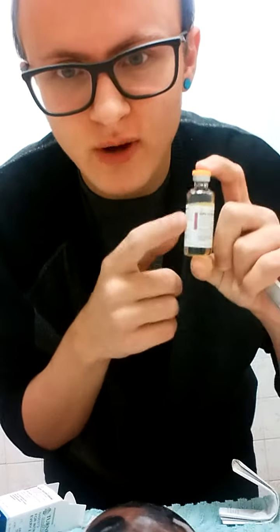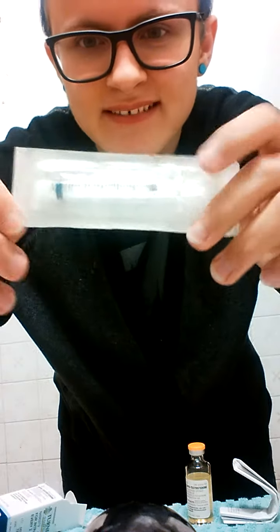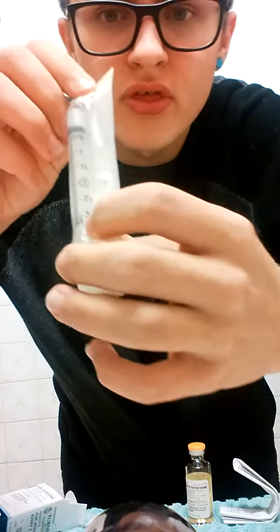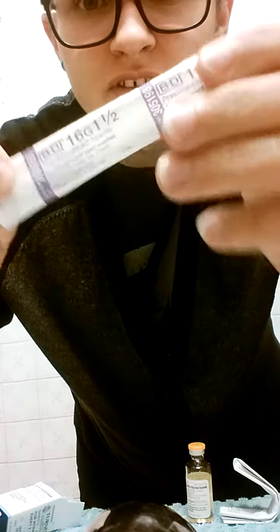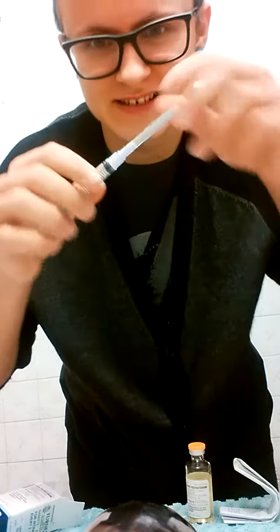So you have the testosterone — this one's new, I just got it like yesterday, so it has the top part on it. There's this — I can't zoom or whatever — it'll look kind of weird when it's done. It's got 3ml, whatever that means. So you open it, and you have the bigger needle — it's 16 gauge — and you open that like this.